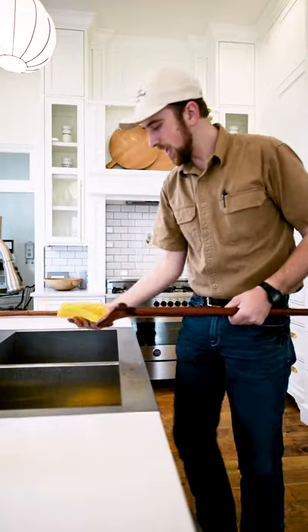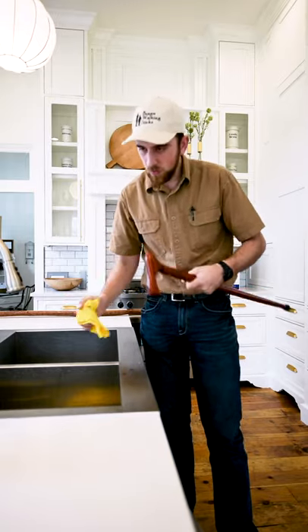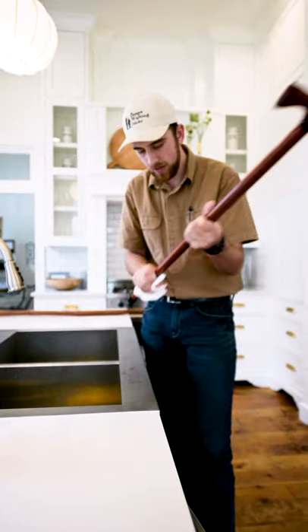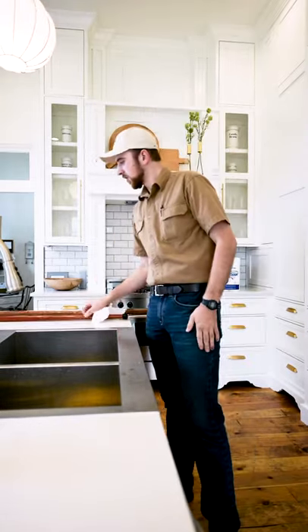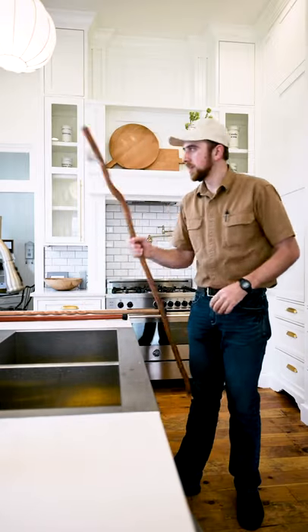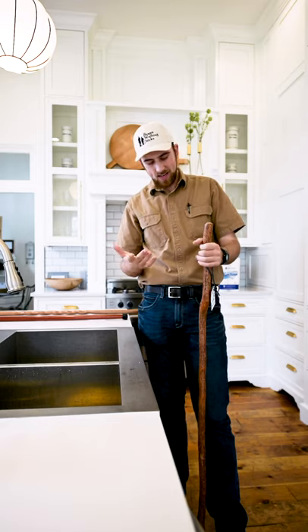The cane — clean it off the exact same way. Give it a good wipe down. Grab your paper towel. Dry it off. And you, my friend, are good to go. You've got a clean walking stick.